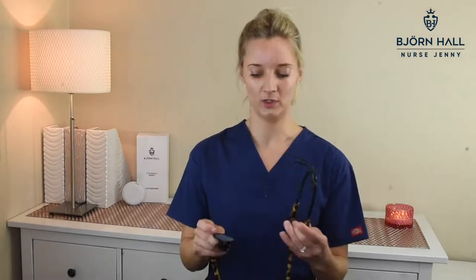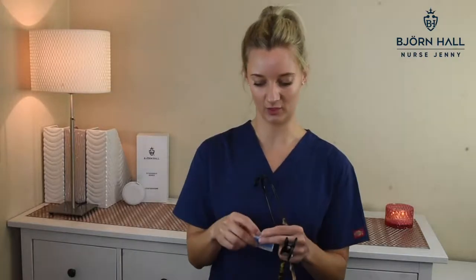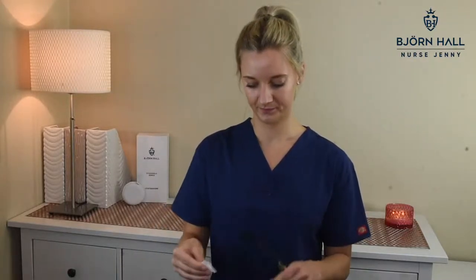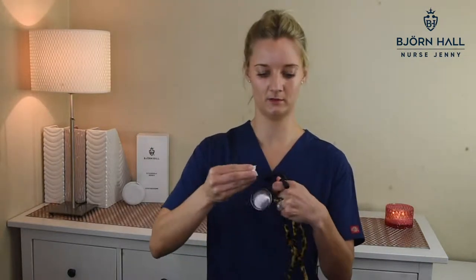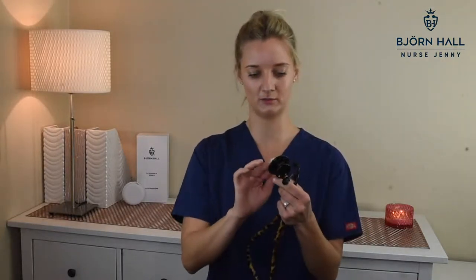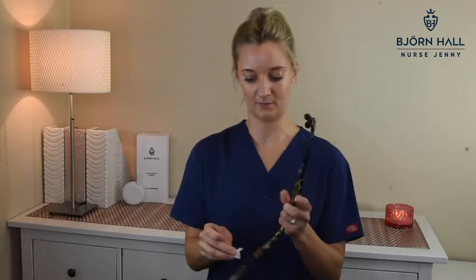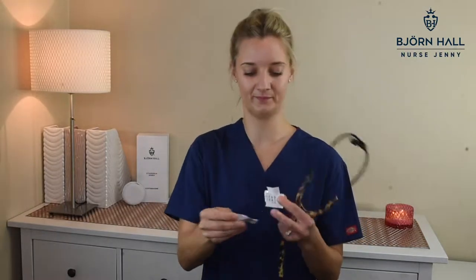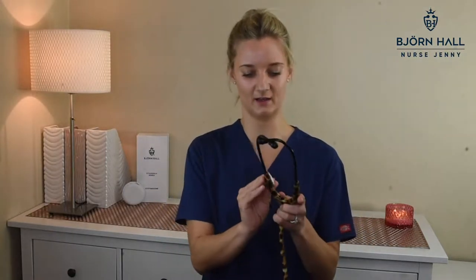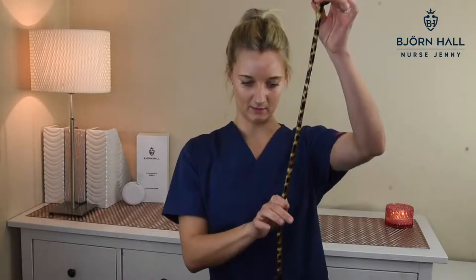So I'll give you a general rundown on how I clean my stethoscope after each patient use. I start with the ear tips, and I always use these alcohol wipes, which I always keep in my pocket at all times — you never know when you're going to need it. Just open that one and clean the ear tips, just like that. I clean the diaphragm that's been on the patient — clean both sides, just like that. If I need to, I can grab a new one and clean the tubing.